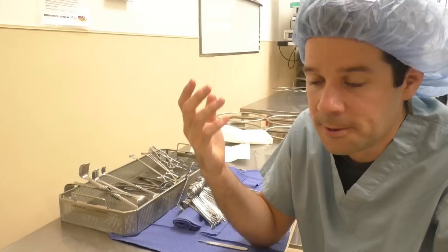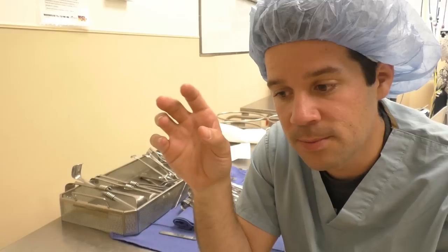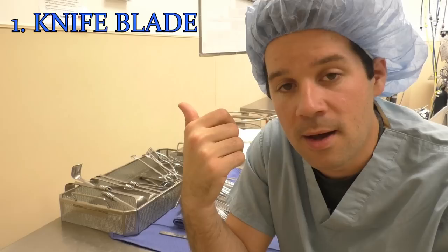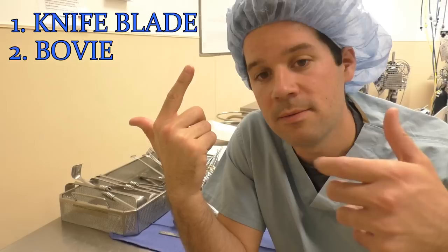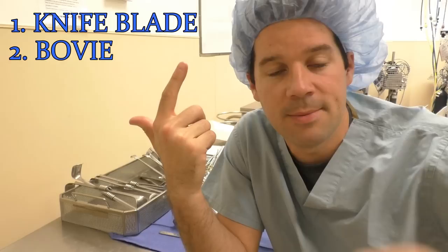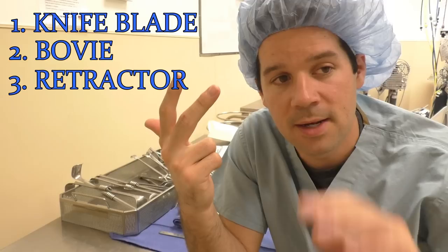I'm going to show you four steps of anticipation for basically any surgery — this will be the opening anticipation to any surgery. It's going to start with your knife blade: after the timeout, you know you're going to need a knife blade because you have to open up the skin. After they use that knife blade, it's the bovie — you should already have the bovie ready in your hand to pass to the surgeon. As soon as they put that sharp down and they're using that bovie, the retractor comes next.